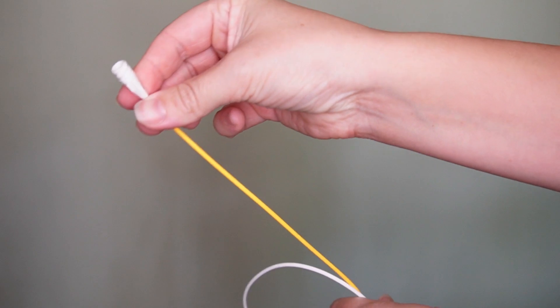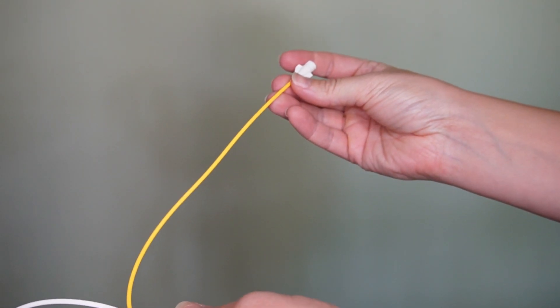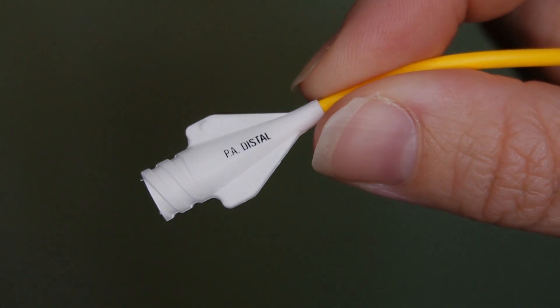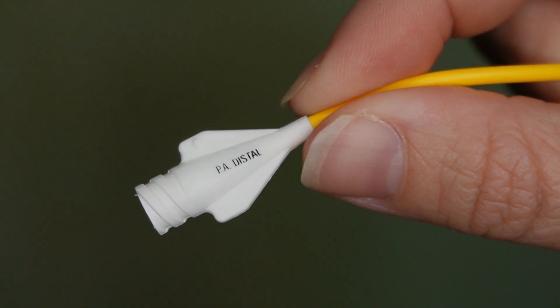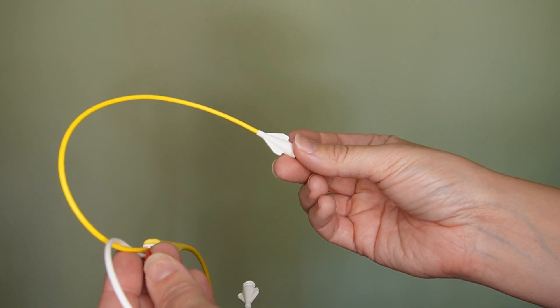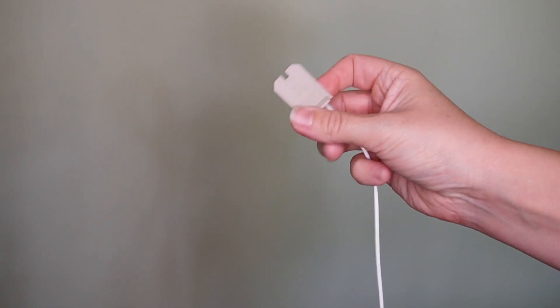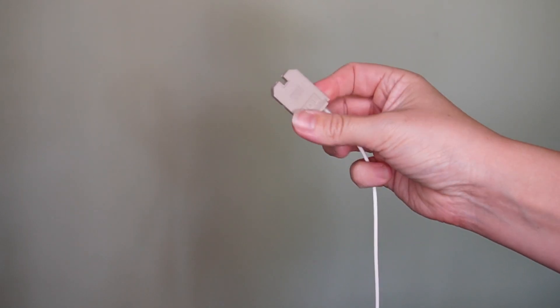The yellow lumen is the pulmonary distal lumen, which terminates in the pulmonary artery. This lumen will also be connected to your transducer system and it obtains pulmonary artery pressures and pulmonary artery occlusion pressures when the balloon is inflated. In addition to that, you can also obtain an SVO2 or mixed venous oxygen sample.